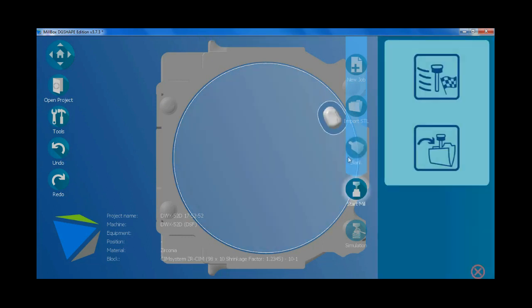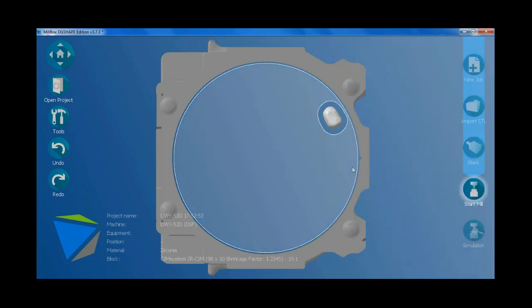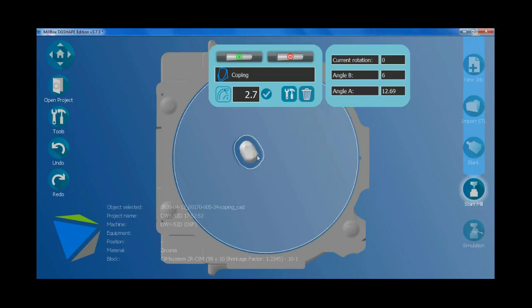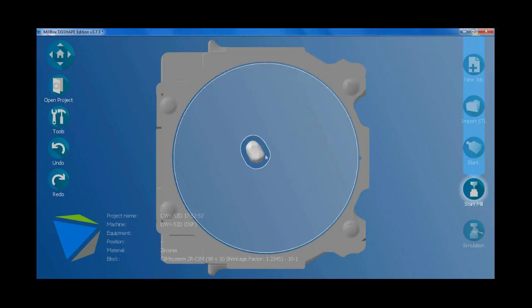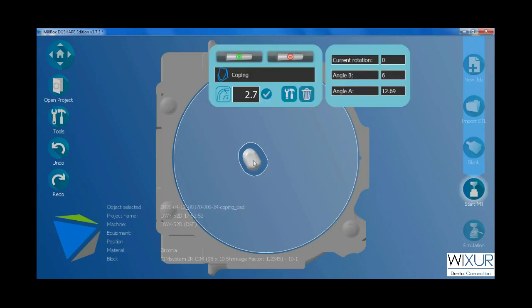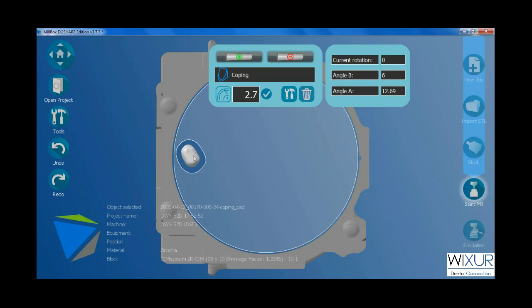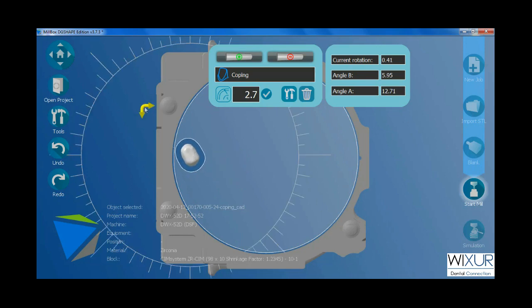Ok, let's nest the crown. By left mouse click, direct the crown to the desired place. Yellow arrows will be used for rotating.